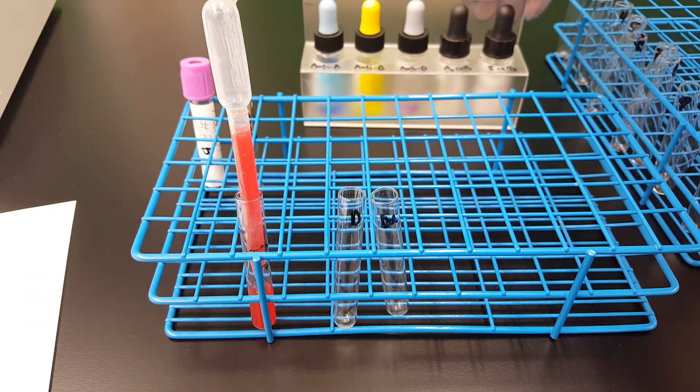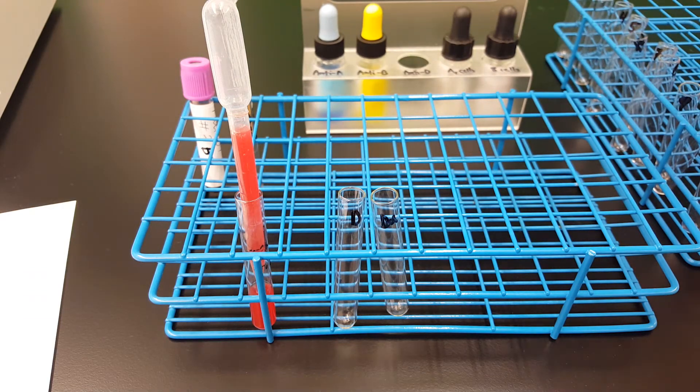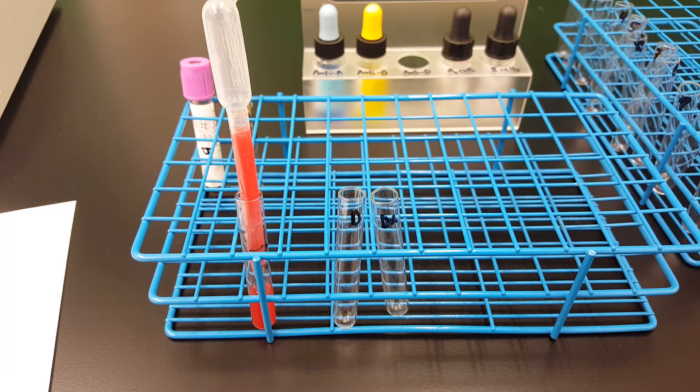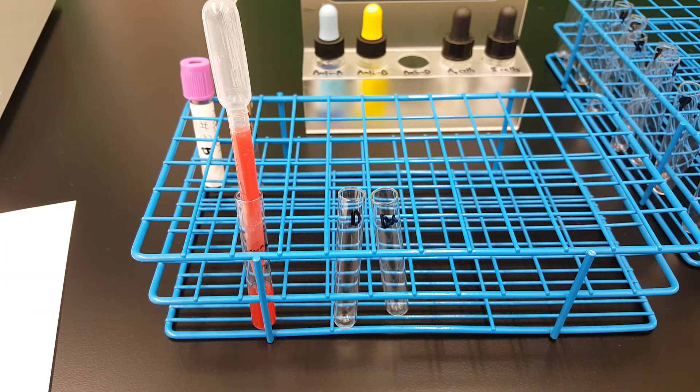So let's go ahead and start. We have the reagents that we add first. If you did this in regular testing, I've had a few days in between testing.